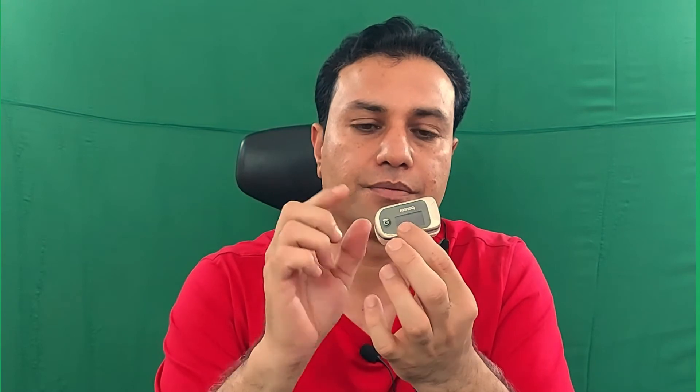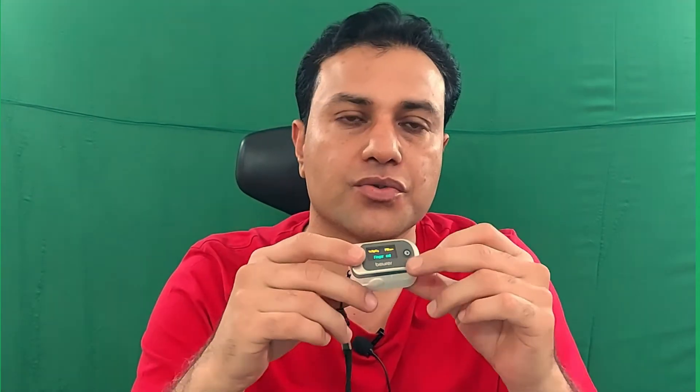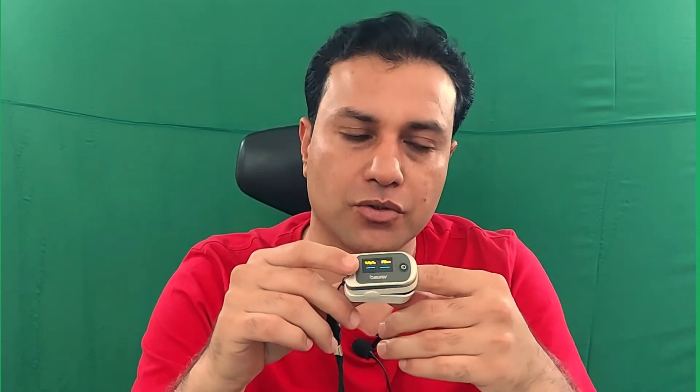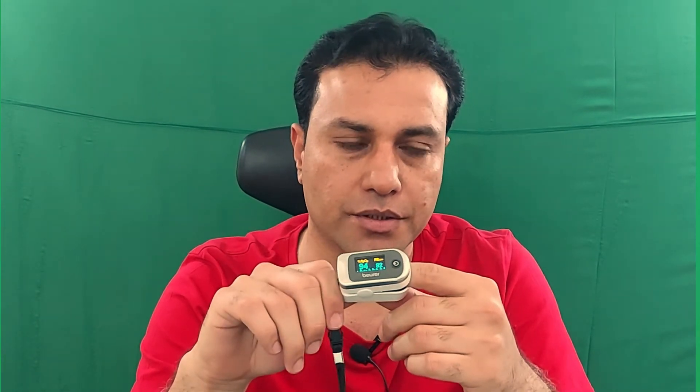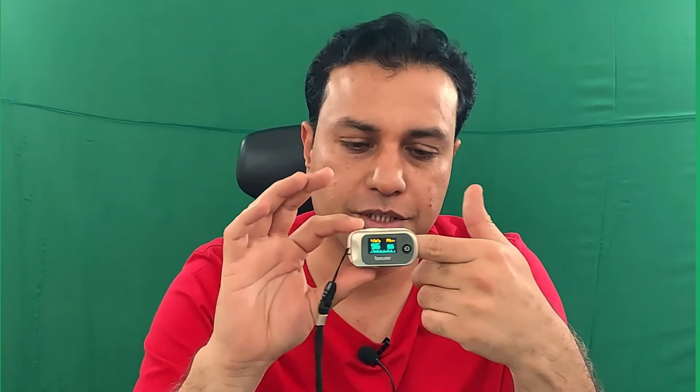They use a pulse oximeter at home for patients with heart diseases, respiratory diseases, and especially for COVID-19 patients — it is highly important. It is better to keep this device at home just as we keep a thermometer.